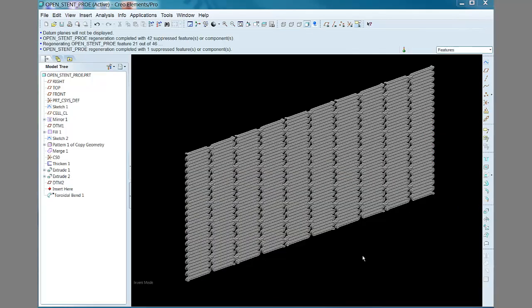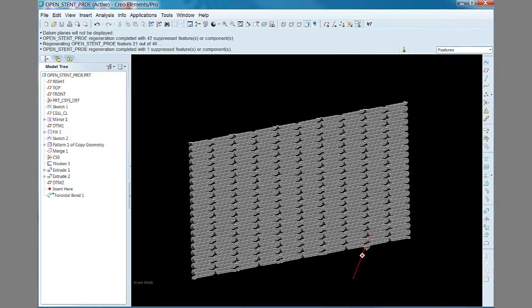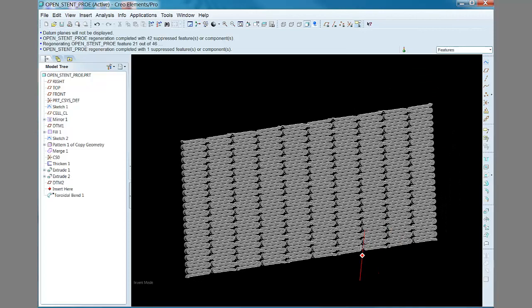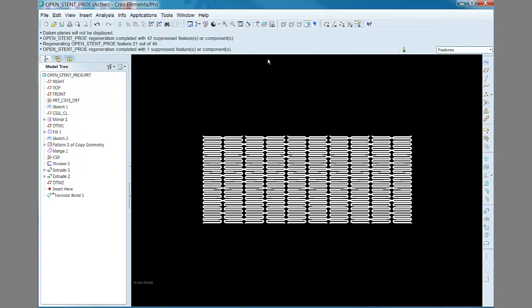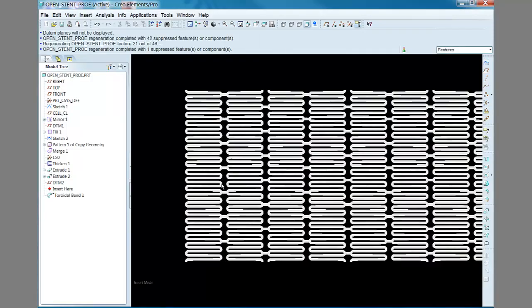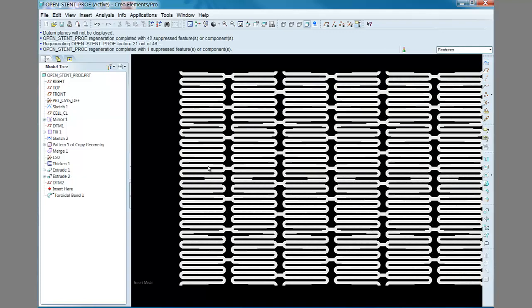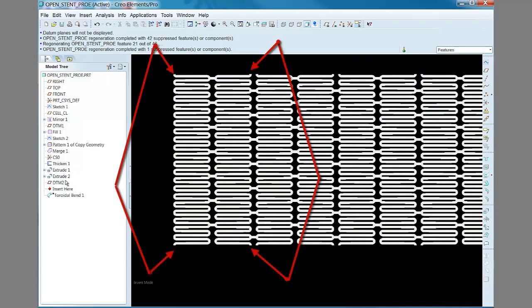Here is the flat surface solid feature that becomes the toroidal bend. Note that the ends of the solid that get rolled together need to match in the x or axial direction. This needs to be done to avoid producing discontinuities or seams in the toroidal bend.